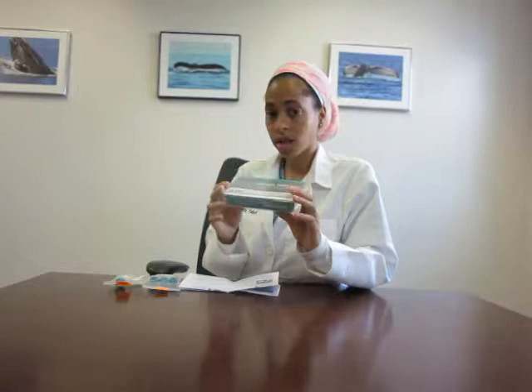Hi guys, I want to run through some instructions for doing your saliva test kit. So if you've gotten a test kit like this, then this video will help you navigate.